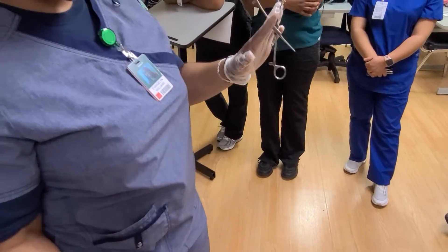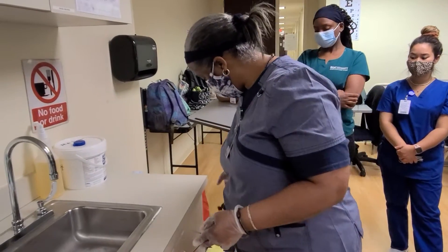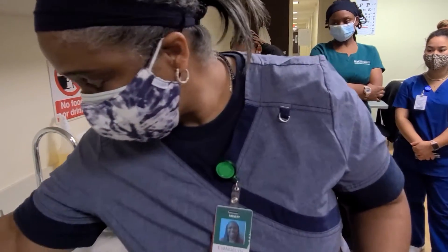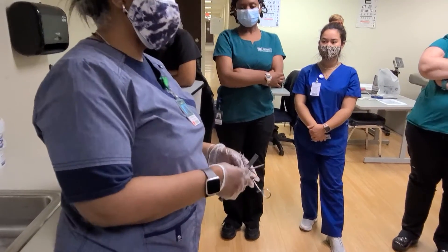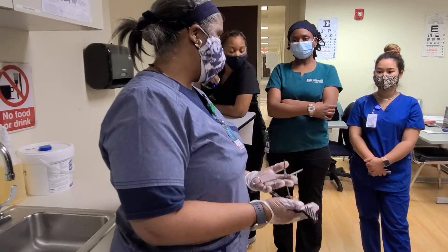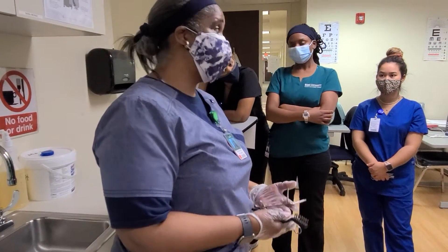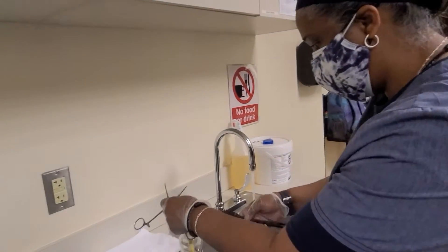Most times, if we have blood on this, we usually like to wash or sanitize it in cold water, because cold water will break up the blood a little bit better. But when I rinse it, I rinse it in warm water. So, let's get to it.